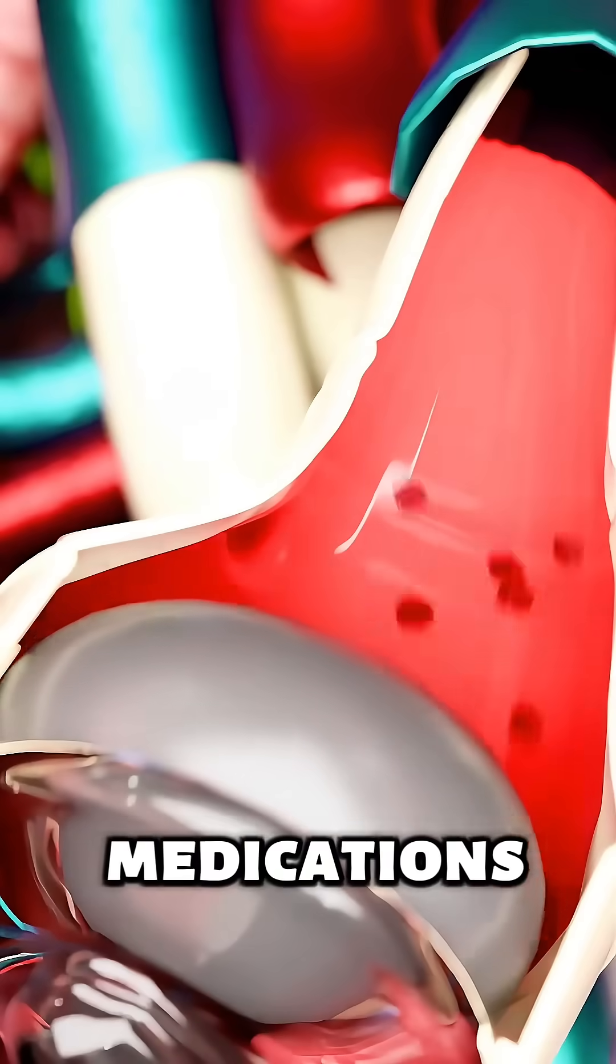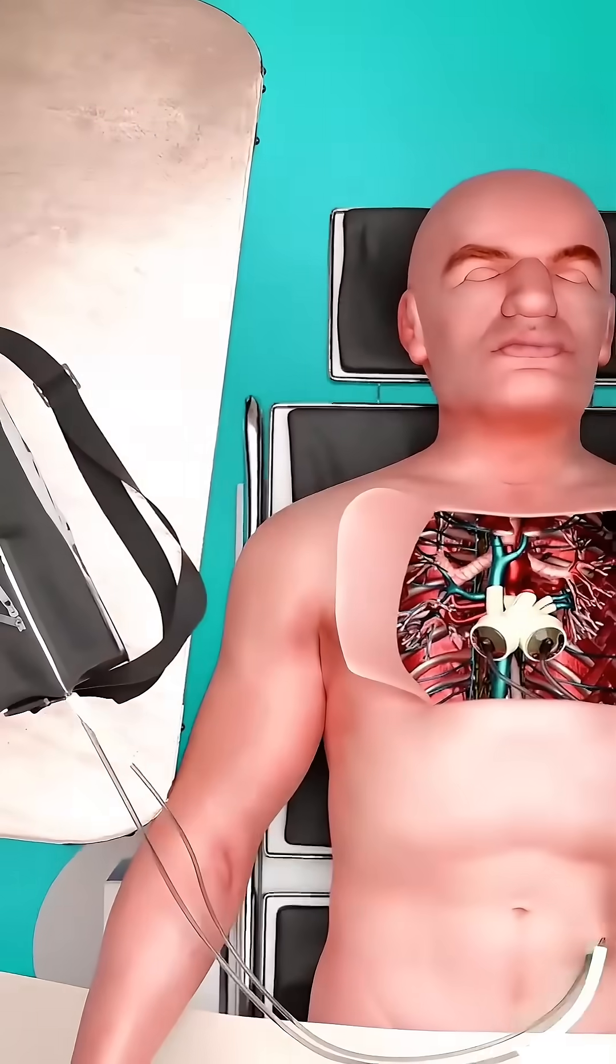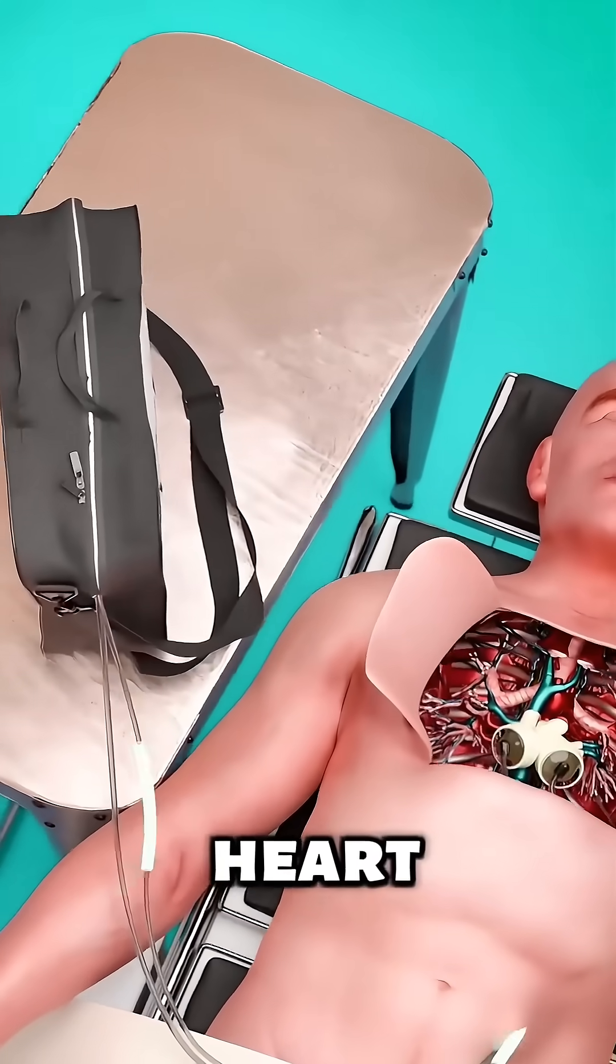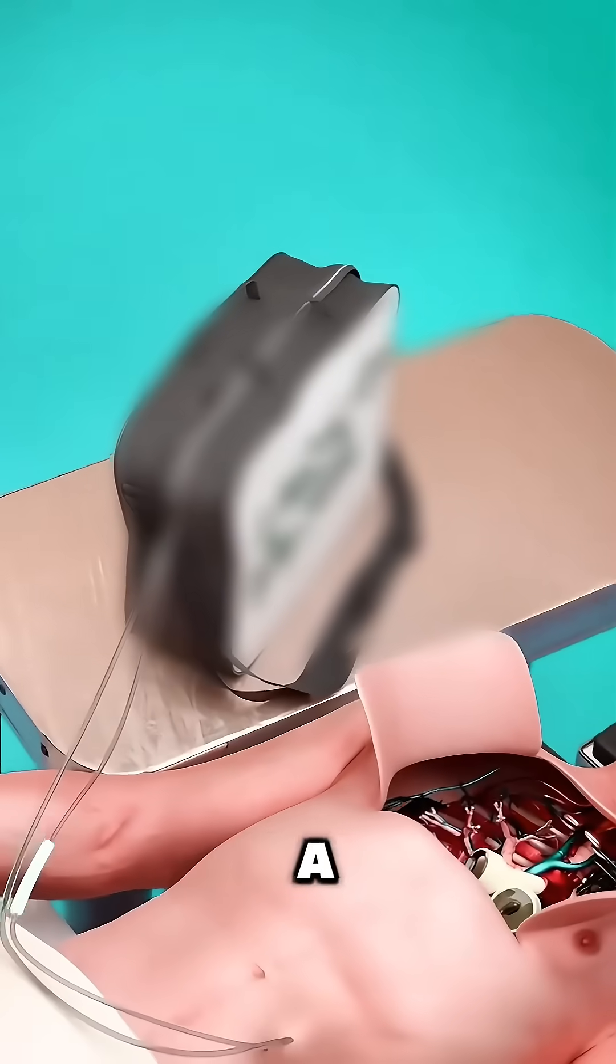Ever wondered what happens when a person's heart is so weak that even medications or devices can't help? That's when a total artificial heart, or TAH, becomes a life-saving option.